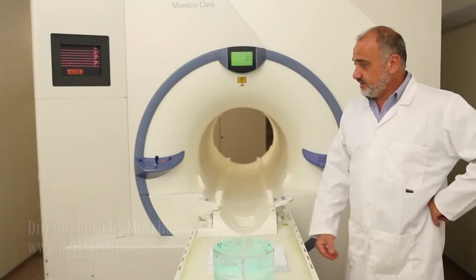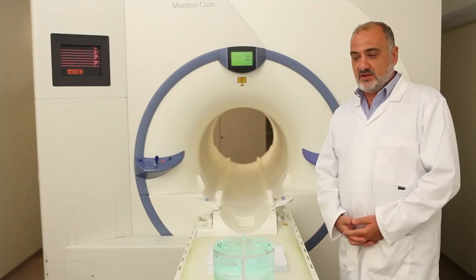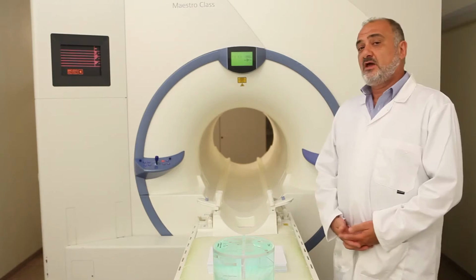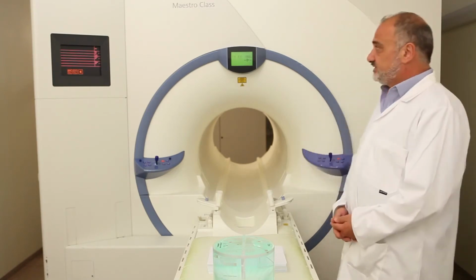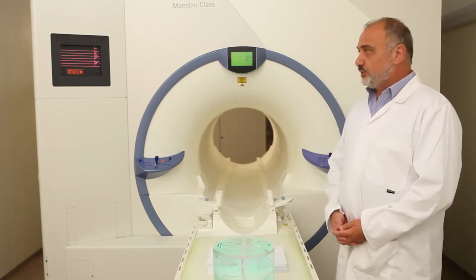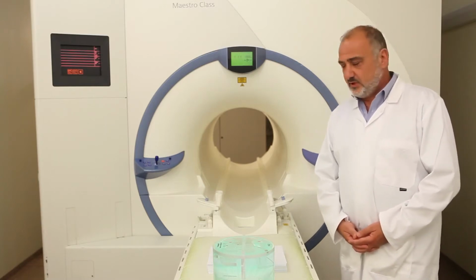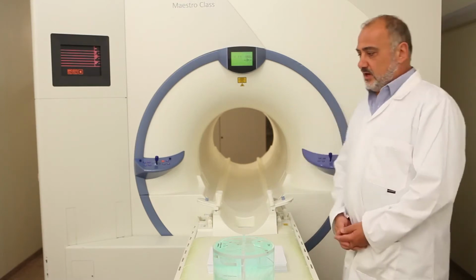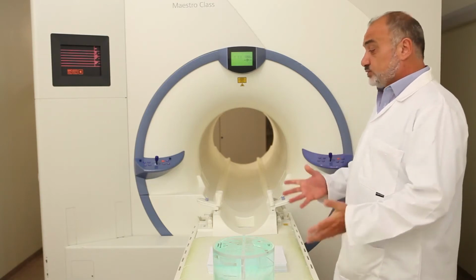Okay, let's start by introducing the MRI system to you. Actually, this system is an old system. It's a 1.5 Tesla Magnetom Vision Sonata hybrid system. In fact, it is a 1.5 Tesla reinforced with powerful gradients. We're talking about gradients with a strength of 45 millitesla per meter and a slew rate of 200 millitesla per meter per millisecond. We're going to make the basic quality control tests.